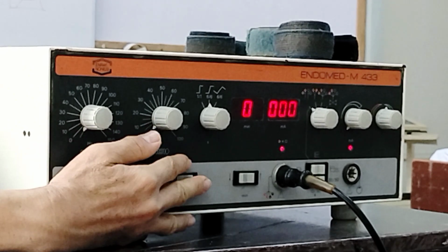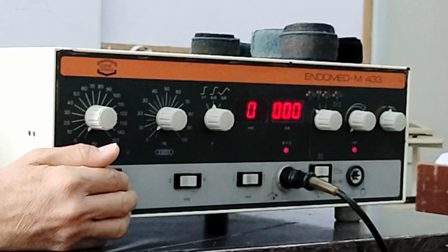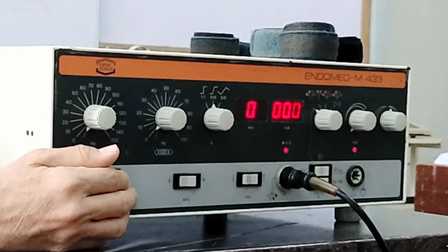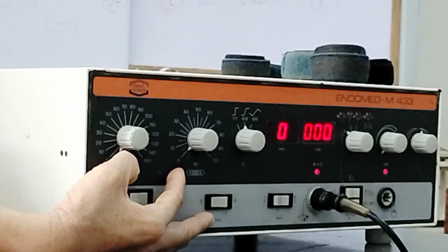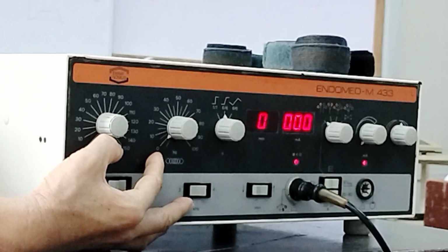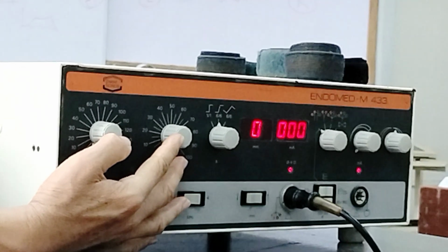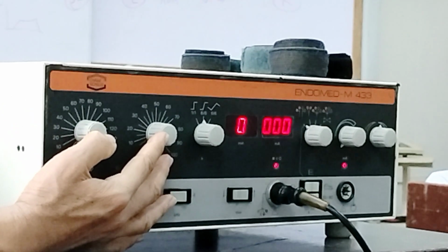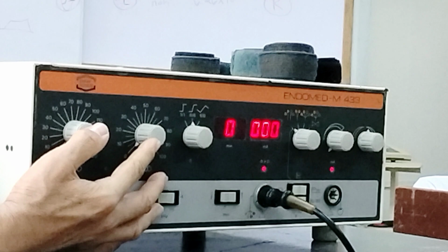Okay, so that is adjusted for the medium frequency current. The next thing to do is to adjust for the other medium frequency current. So how to adjust that? With these two knobs, you can see that the unit there is in terms of hertz, so therefore, this is frequency. In this knob, this is now the beat frequency or the amplitude modulation frequency, which is the resultant frequency that you're adjusting.